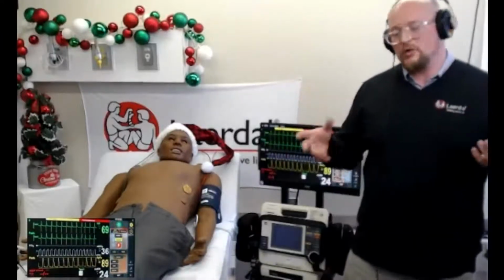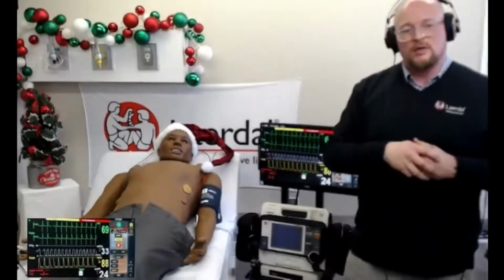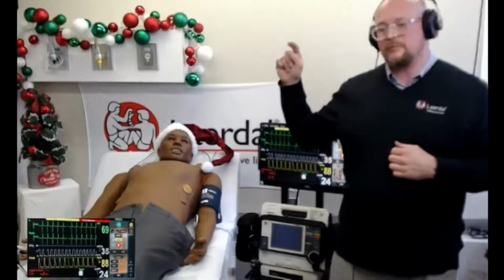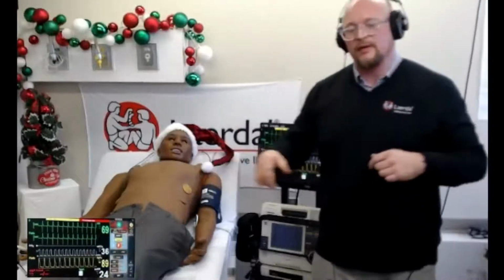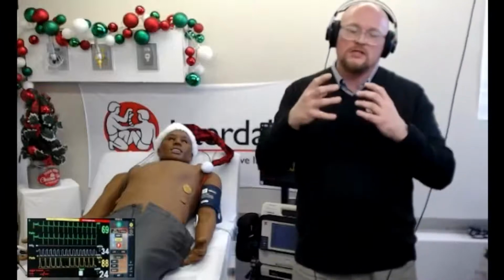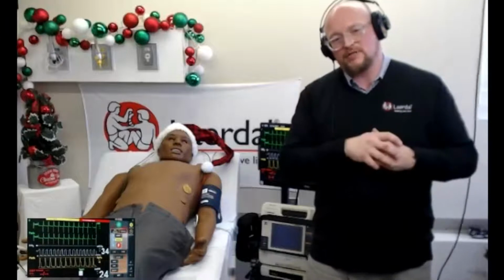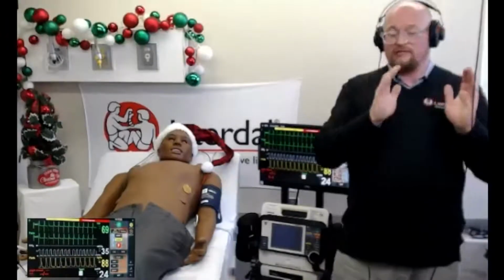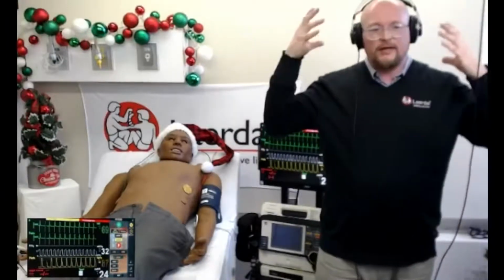One of the things that I do is once I have virtual electrical capture, I'll then just set his pulse with pacer capture. I'll set his pulse to 60. And so then it will match up with what they have captured. And I kind of like that way better because I always used to teach, get your electrical capture and then go up by 10%. And so if they didn't go up by 10%, they'd have electrical capture but still wouldn't have mechanical capture, which I don't know if it could really happen in my pretend world. I haven't seen it clinically, but in theory, I guess there could be something there.